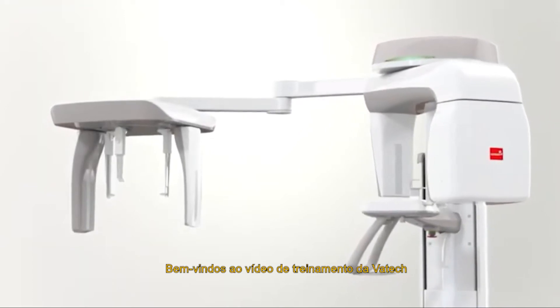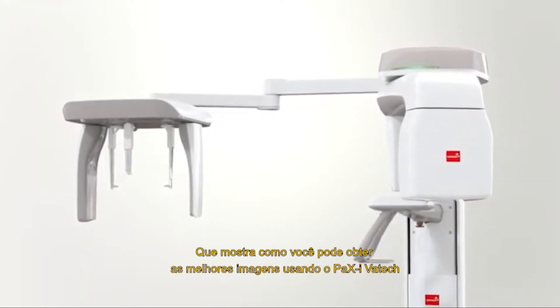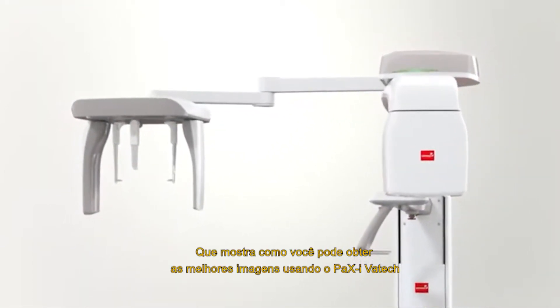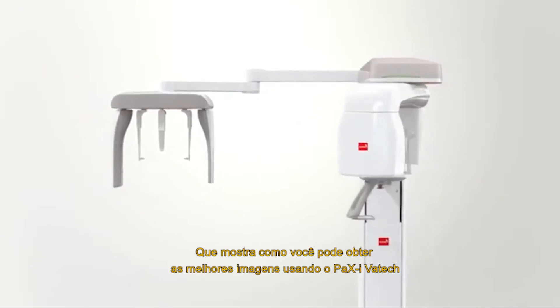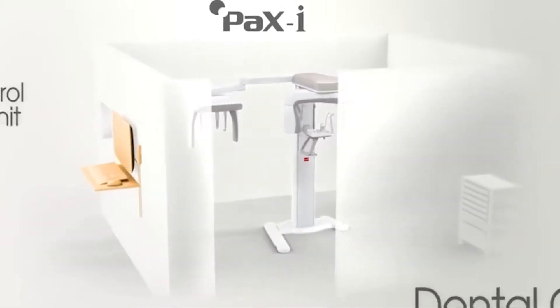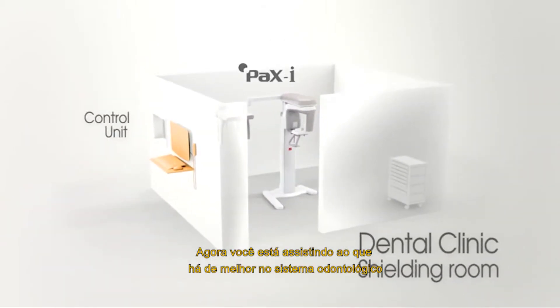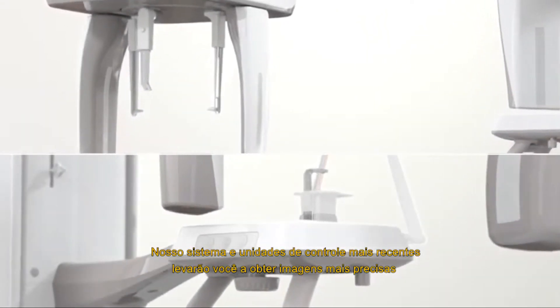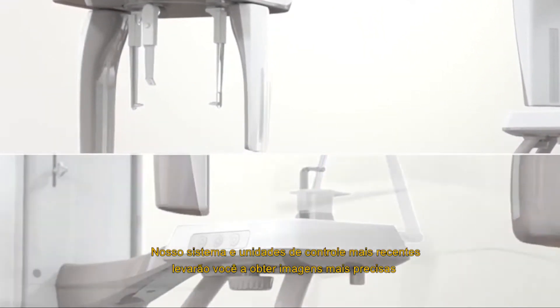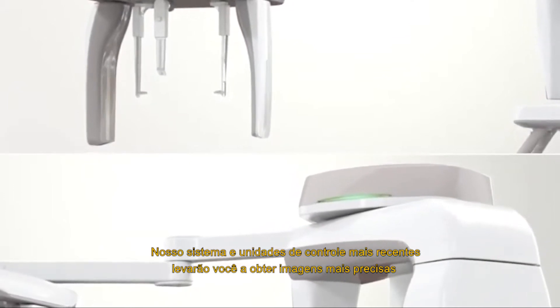Welcome to VATEC video training that shows you how to take the optimum images using the latest product manufactured by VATEC. You are watching the state-of-the-art medical system. Our latest system and control units will take you to acquire the most accurate images.